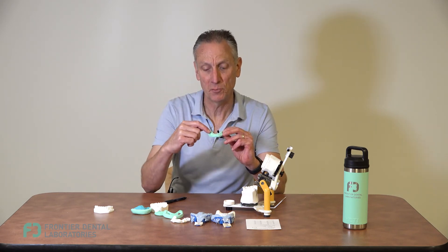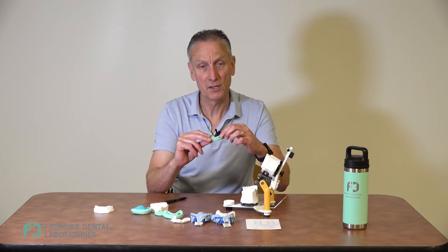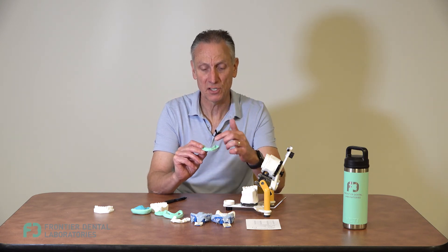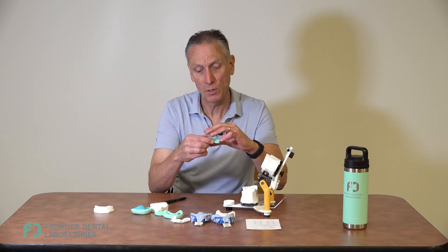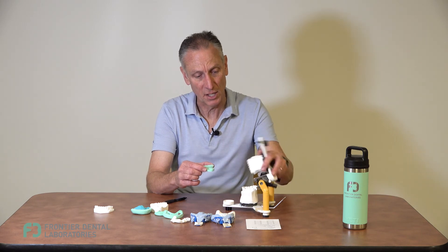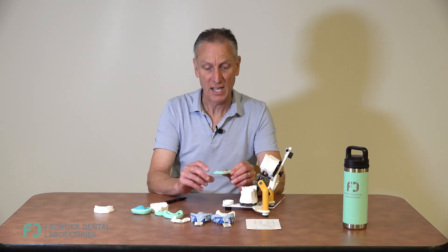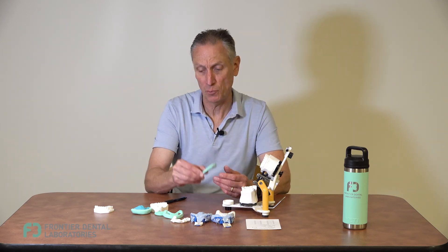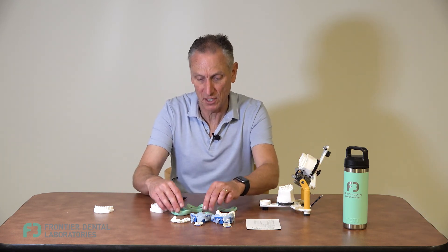How you use the horseshoe putty bite is quite simple. You'll build a tripod bite by prepping the right side first. Once you're close to finishing the right side, put the matrix back in and flow bite material — blue mousse, vanilla bite, or similar — to reline and capture the right-side bite. Then prep the left side and do the same thing, then prep the anteriors and flow bite material again. This way, when we receive the prepped case, it'll be at the correct vertical that we established during the bite opening — it's very predictable and prevents losing your vertical.